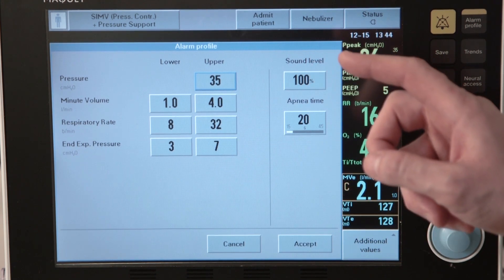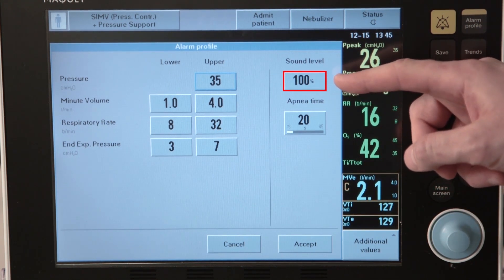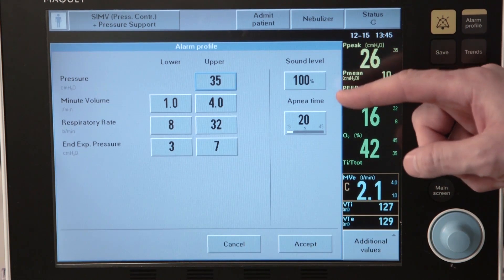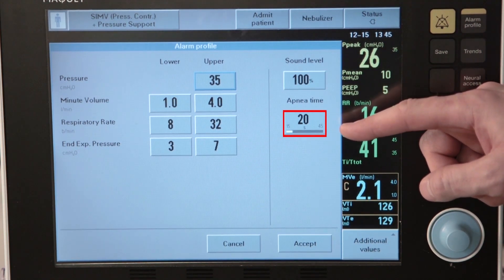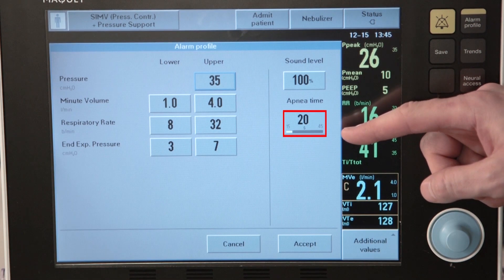On most ventilators, you may also adjust the alarm volume — in this case, we are set at 100%. A final safety check is your apnea time, in the case that your patient is spontaneously breathing and has an apneic episode. As another part of our alarm assessment and ventilator safety check, we must assess the disconnect alarm to alert us of any disconnections in our patient circuit. If your patient is stable enough, you may conduct this safety check at any time. However, if your patient is on a substantial amount of support and does not tolerate disconnection, you may wait until you are suctioning the patient or they require manual ventilation.